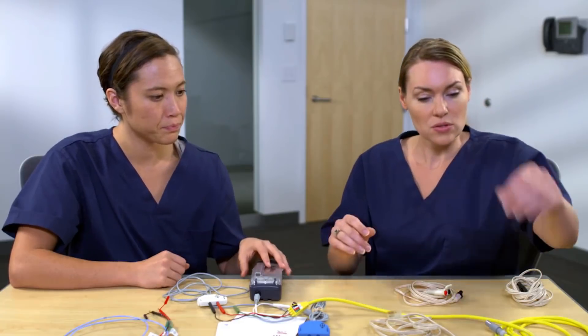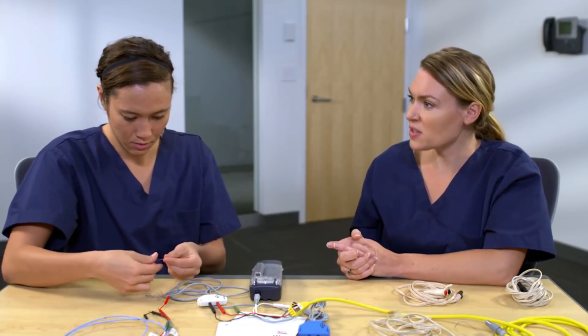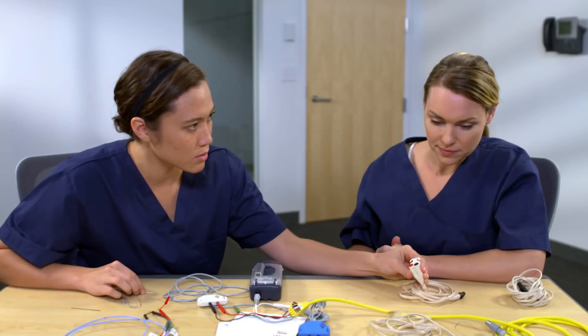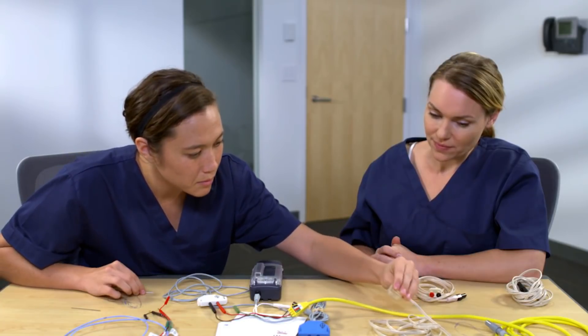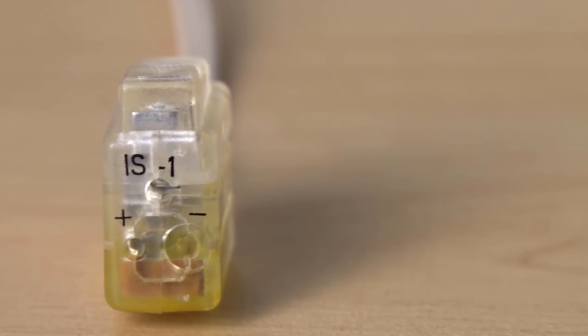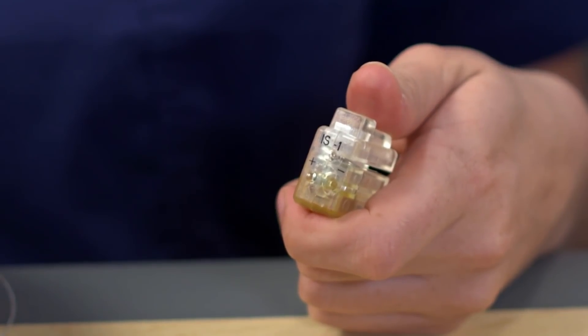Next I'll show you how to connect with a heart wire. Heart wires are fixed directly to the cardiac tissue. Once the heart wire has been placed in the patient and is ready to be connected, the connecting end is divided at the perforation. Go ahead and divide the split end. Now we're ready to connect it to the cable — please choose a cable that you think would work. This is the 5487 cable and it is the one to use with a heart wire. Go ahead and place it in the port — remember to depress the button when inserting.